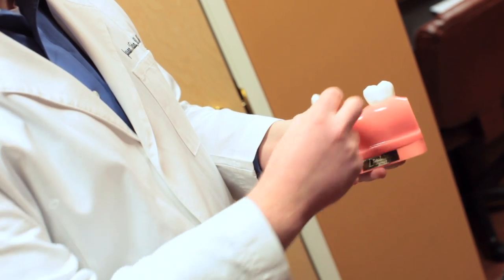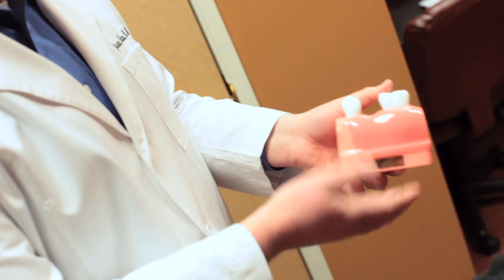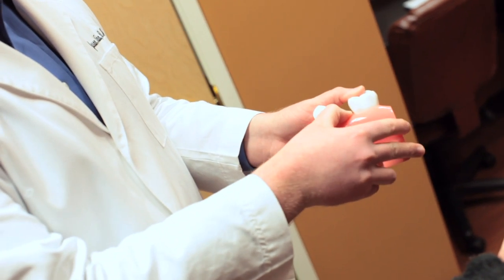If we're missing a single tooth, we have the technology today to replace the root. An implant is a titanium root replacement — that's all a dental implant is. You can see these are the natural roots of a natural tooth, and that's the implant root that goes down into the bone.